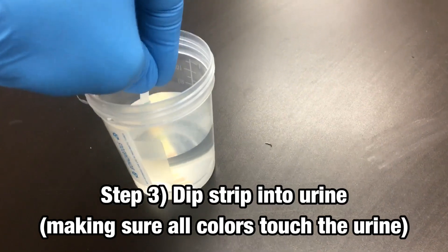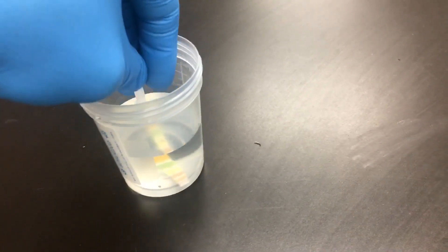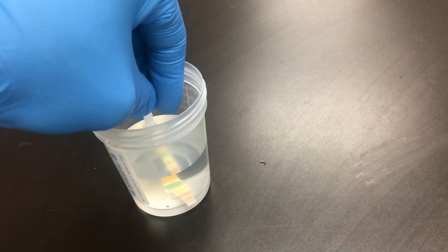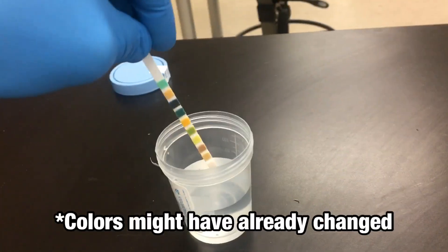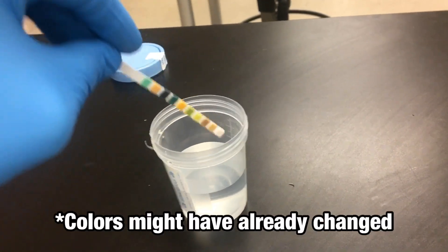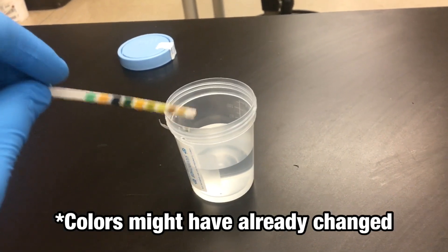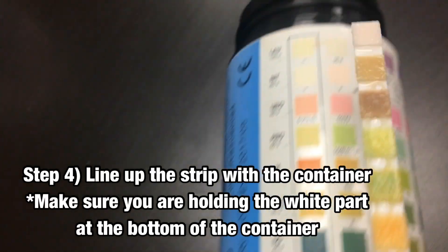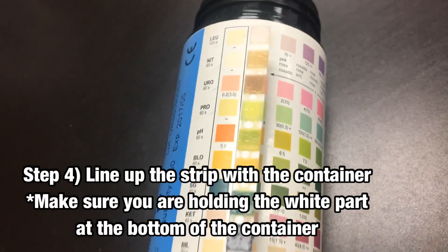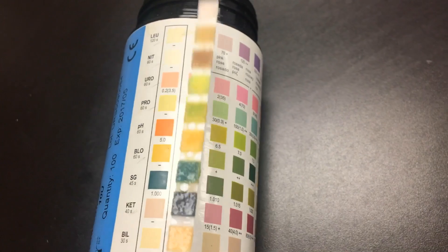Make sure all the colors touch the liquid. It just needs to be about five seconds. Pull it out — you might already notice some colors changing. Wipe it off, and then bring it over and line it up with the appropriate colors.